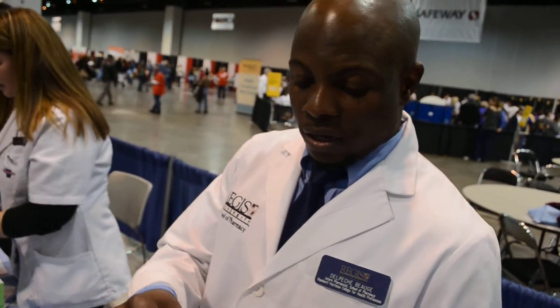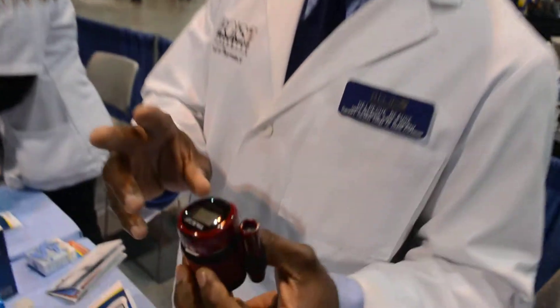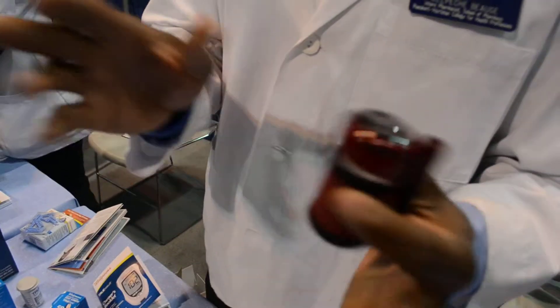This right here is a glucometer. It's one of the smallest ones around. It comes with 10 strips. It's $9.99, and it's $9.99 mail-in rebate, so it's automatically free.